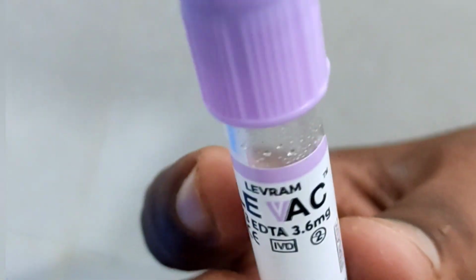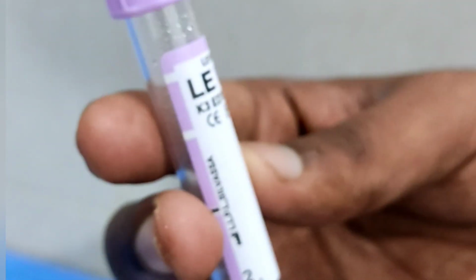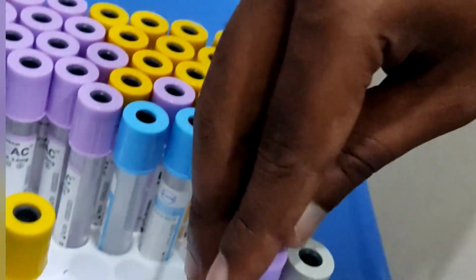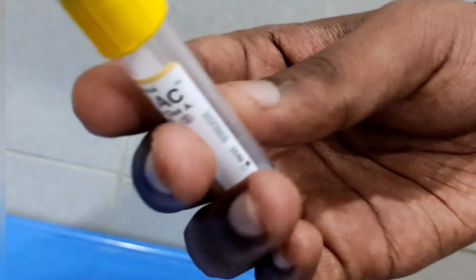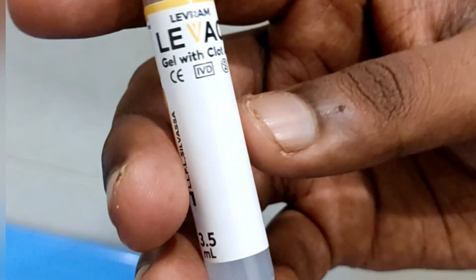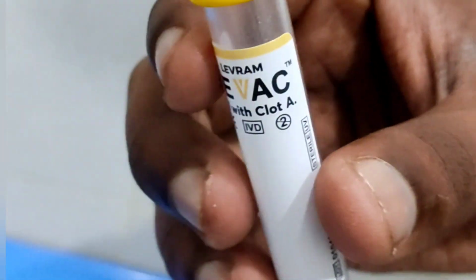Do not transfer material from a syringe to a tube, and do not use blood collection tubes after the expiration date. Do not use if the cap is opened, and do not use if there is any foreign matter present in the tube. Do not use if there is any breakage on the tube wall, and do not use if there is any visible water drop present in the dried tube. Do not use the tube if the solution in the citrate tube presents discoloration or precipitate, and avoid exposure to direct sunlight.